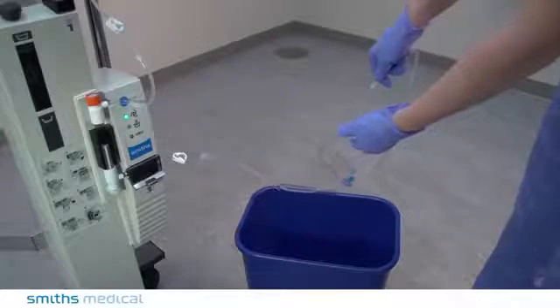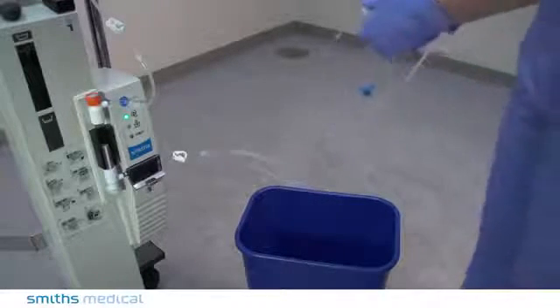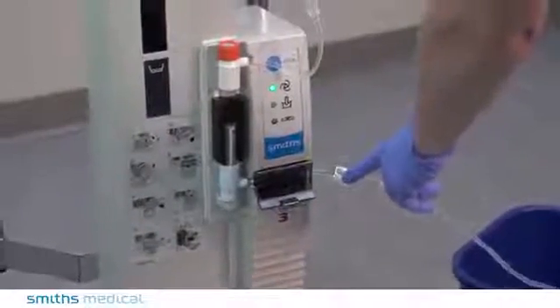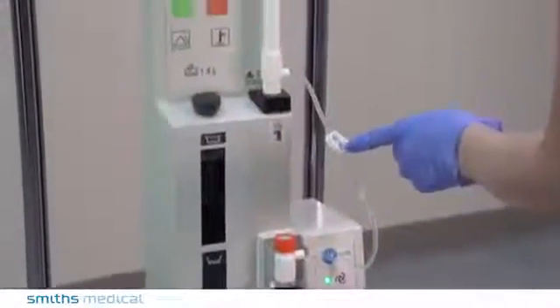Once priming is complete, close pinch clamps before connecting to the patient. To start the infusion, open the fluid line pinch clamp and the pinch clamp on the patient line.